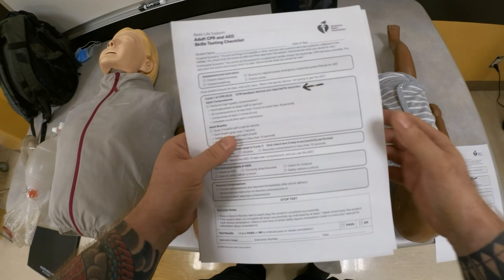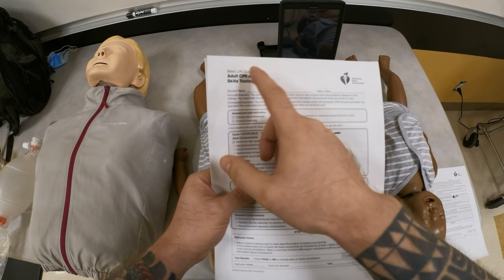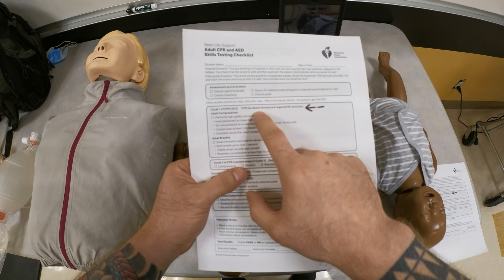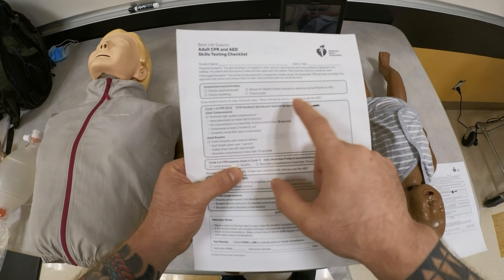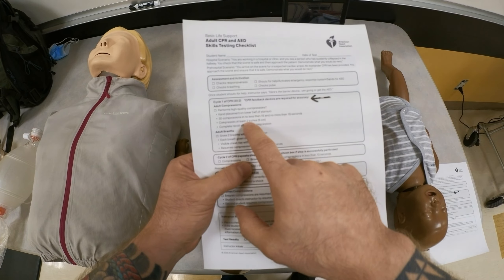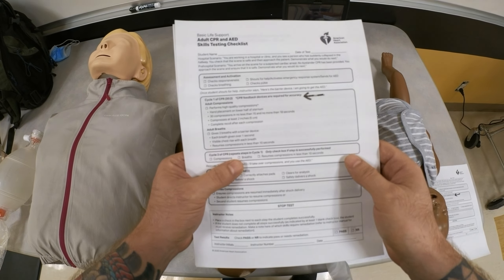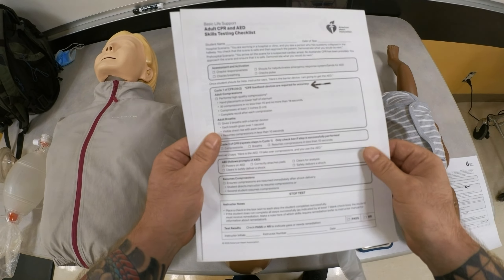For your BLS checklist, you also have the same requirement — CPR feedback devices are required — and again, this is to make sure the depth and rate are being performed per the AHA guidelines.